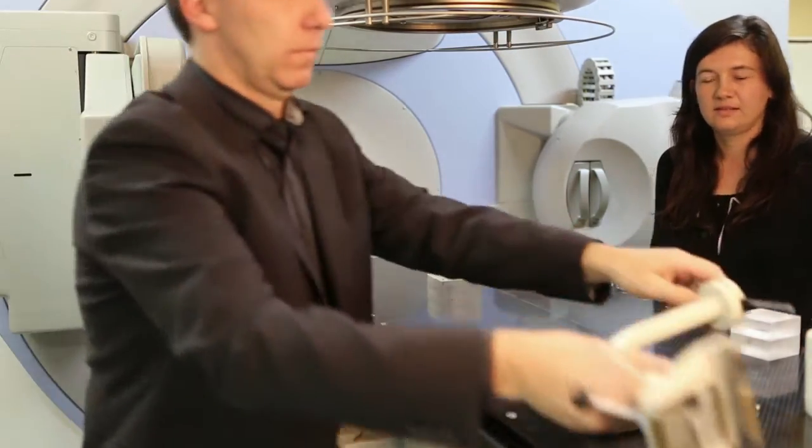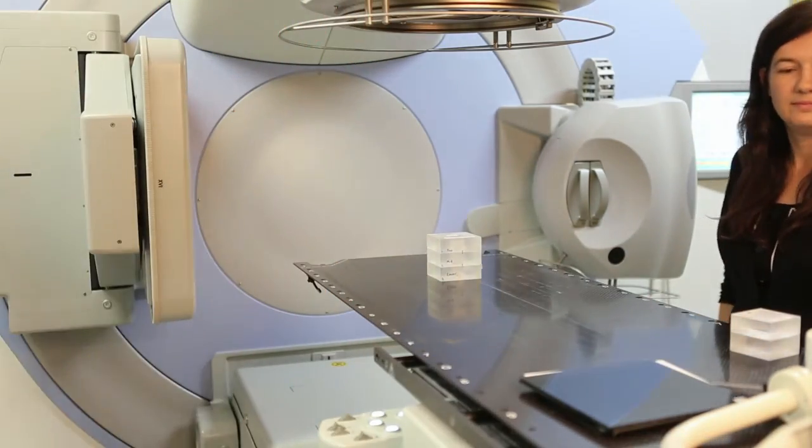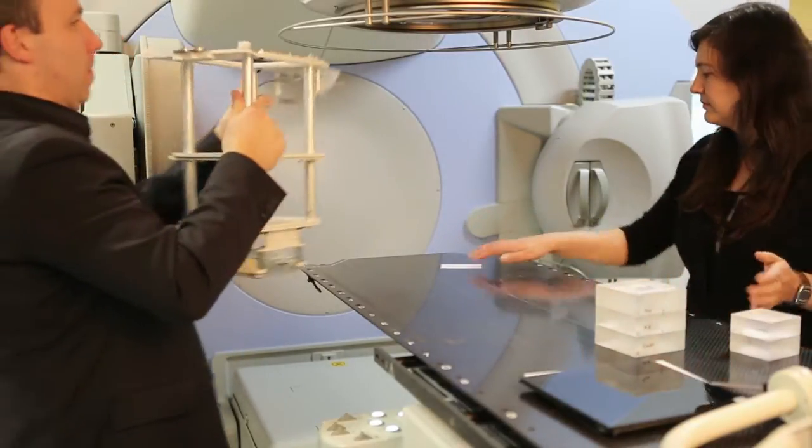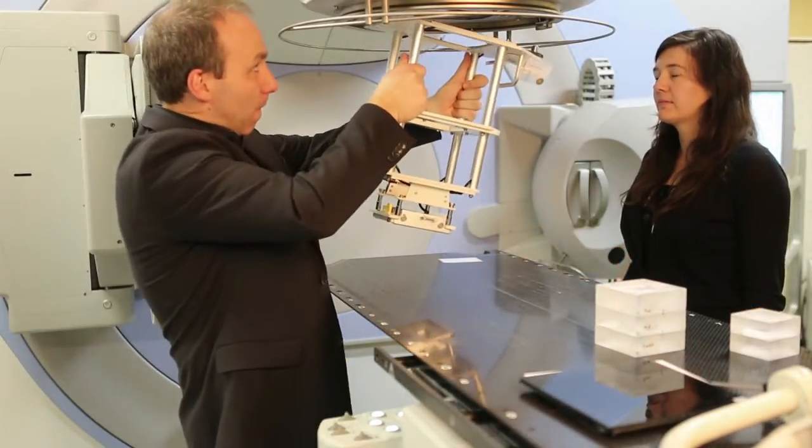Take the phantom out of the way and install the electron applicator. A 10x10 applicator with the standard 10x10 insert should be used for all energies regardless of the reference applicators at the facility.